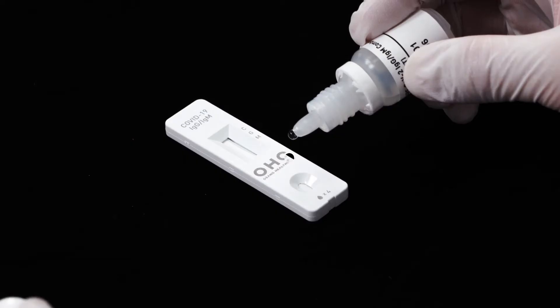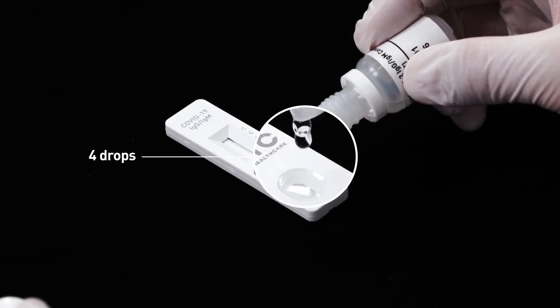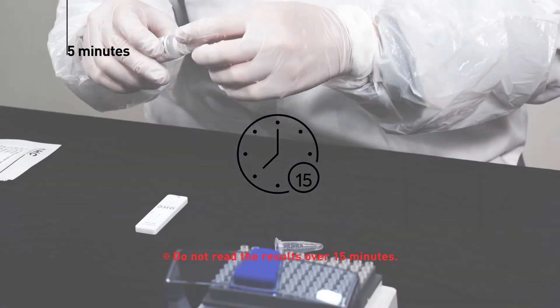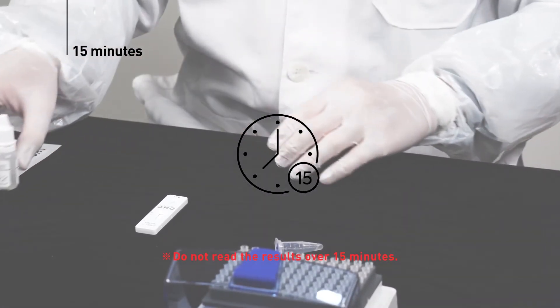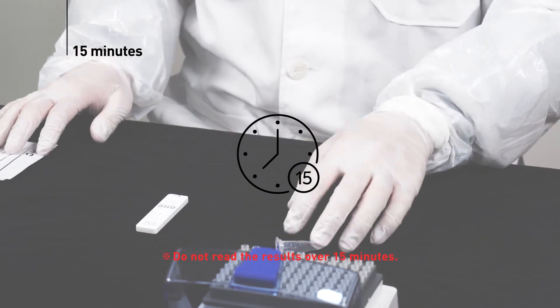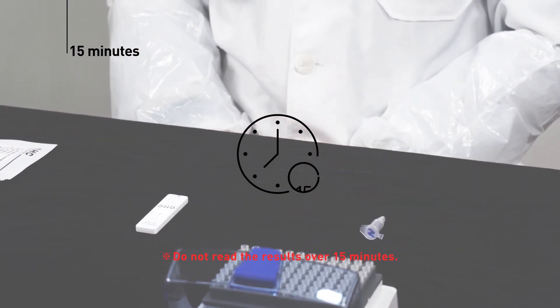Next, add 4 drops of sample diluent into the sample well of the cassette. Read the test result at 15 minutes after adding sample diluent. Do not read the results over 15 minutes.